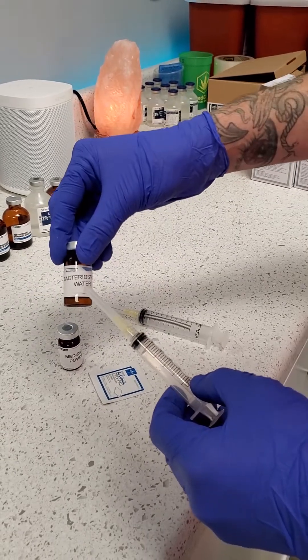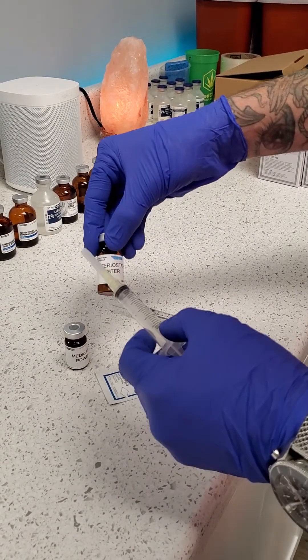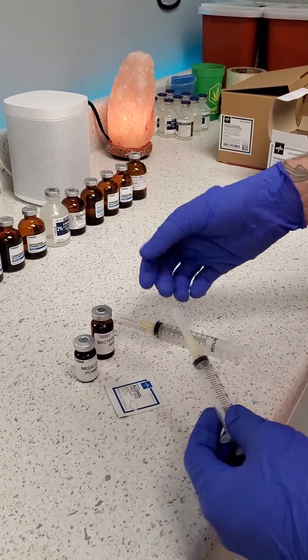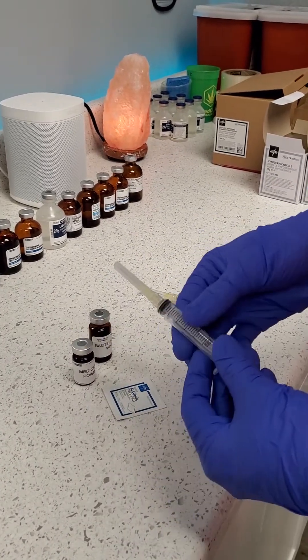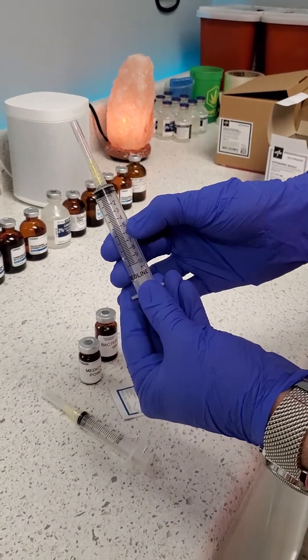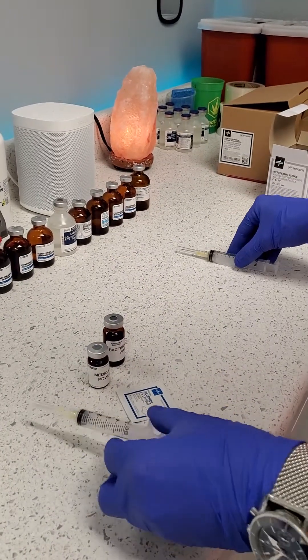You will also have your bacteriostatic water. Some pharmacies will pre-measure this, so if the medication requires 5 ml they will make the vial a 5 ml vial. Others will give you a larger vial, like 10 ml, and in that case you would only fill to the 5 ml mark instead of going all the way to 10. The supplies they give you should work no matter what the concentration is.